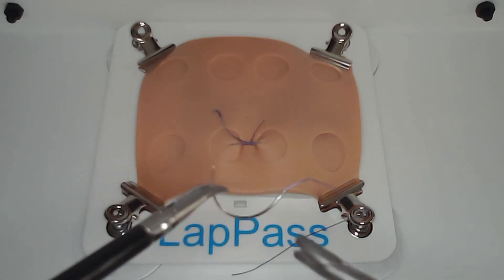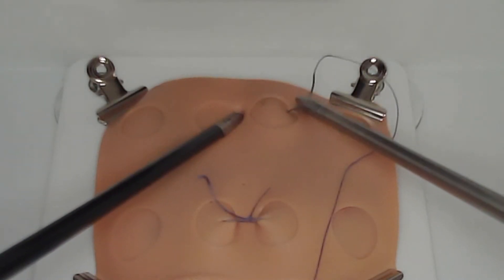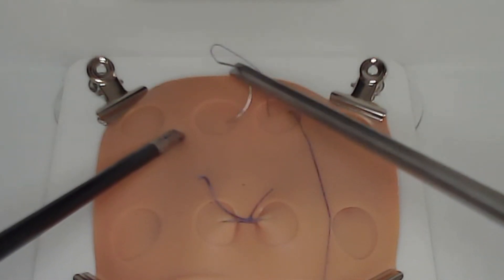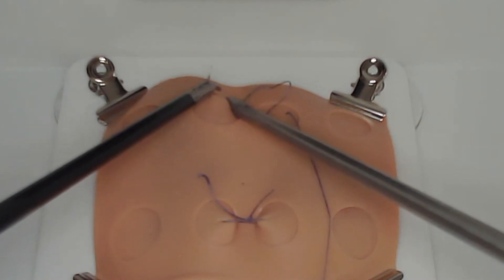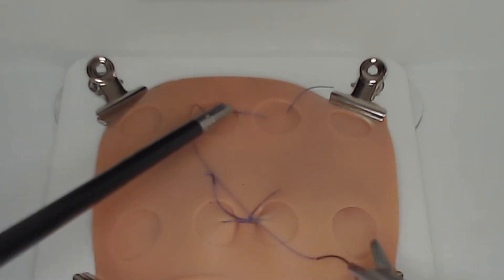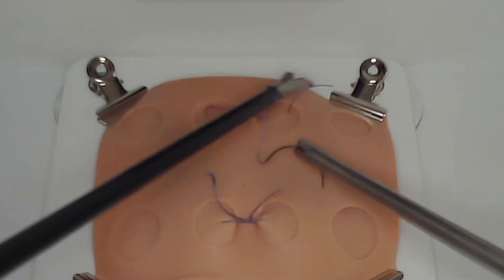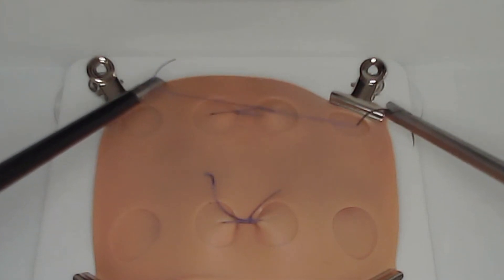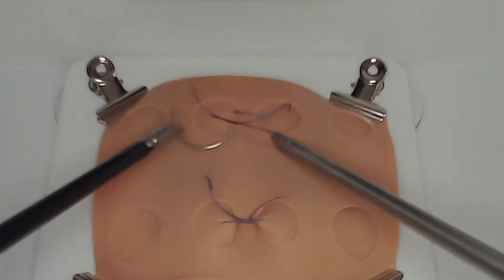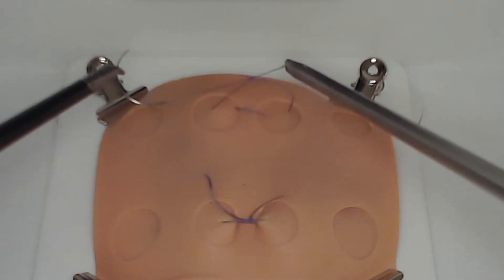This is another method of picking up the needle, making sure the needle is perpendicular. This is easier if the instruments are brought closer to you before placing it into the tissues. When you have a short thread you can use the needle to help you create the throws. The ideal length for two sutures is between 20 and 25 centimeters, but if you do run short, using the needle to create the loop is a benefit.